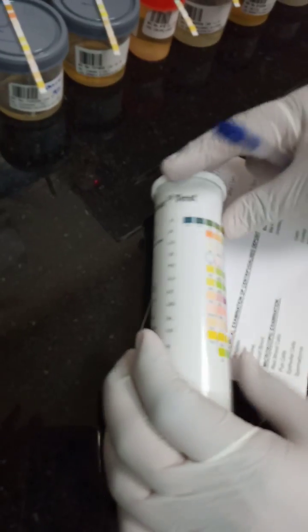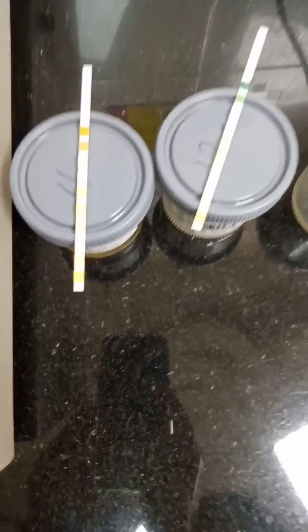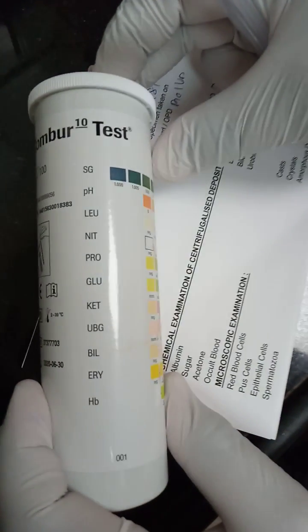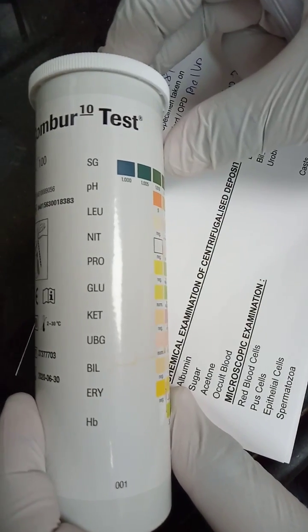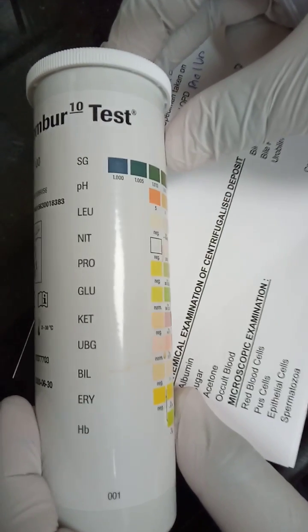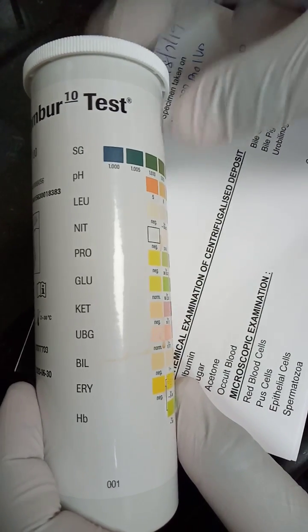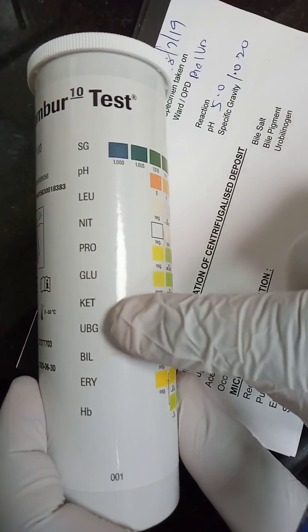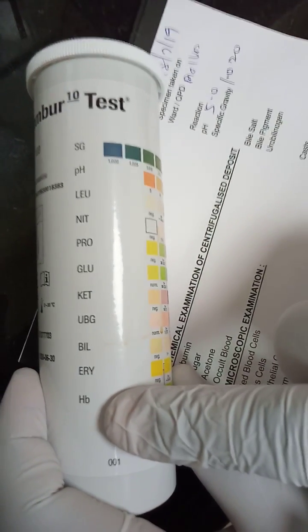This is how urine routine examination is done. There are strips like this which we match with the paper on the bottle, which shows specific gravity, pH, leukocyte, nitrites, proteins, glucose, ketone, urobilinogen, bilirubin, erythrocyte, and hemoglobin.